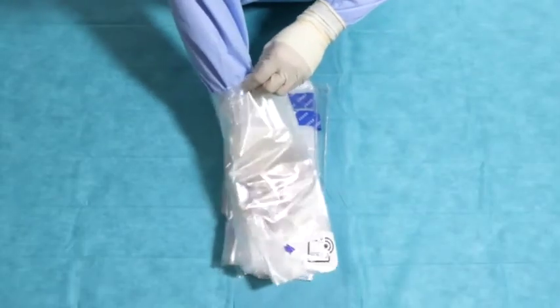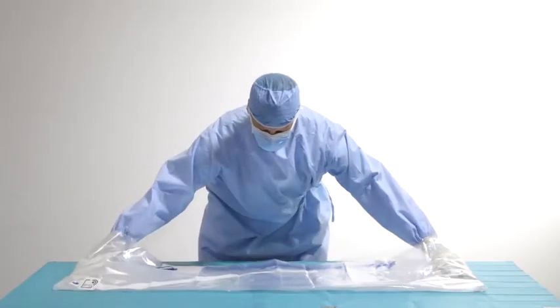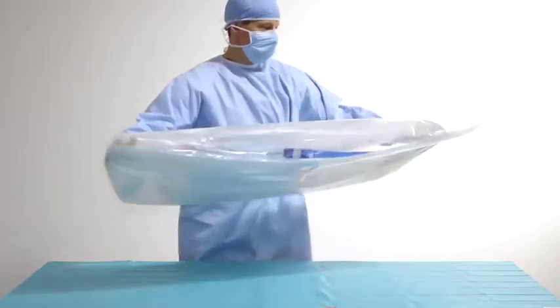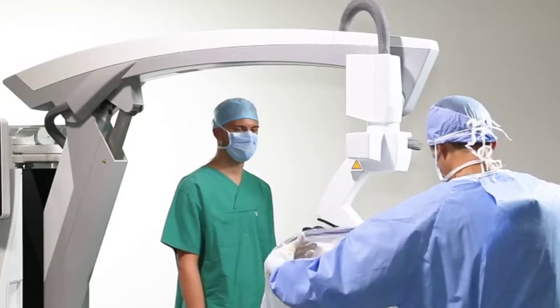First, insert your right hand. As you slide in your left hand, the drape opens up. Covering the head, slide Smart Drape over the arm of ZEISS Kinevo 900.